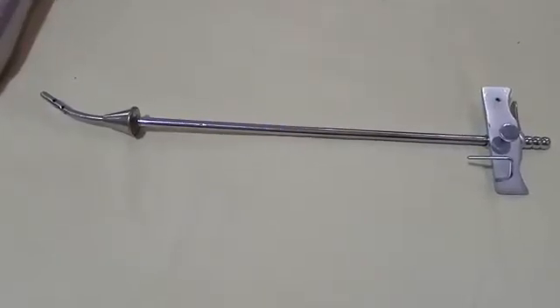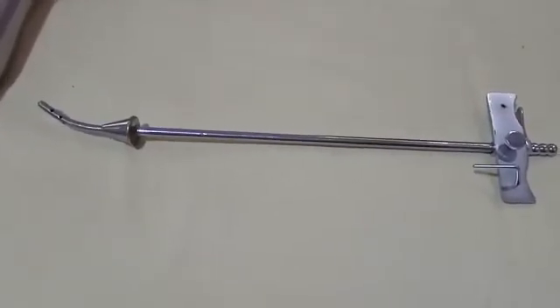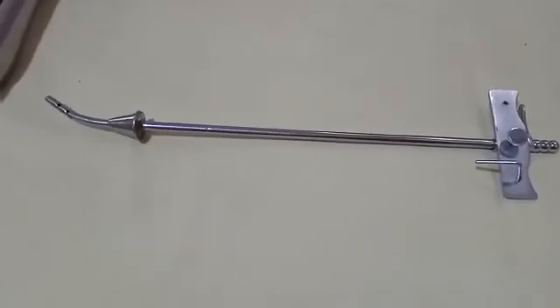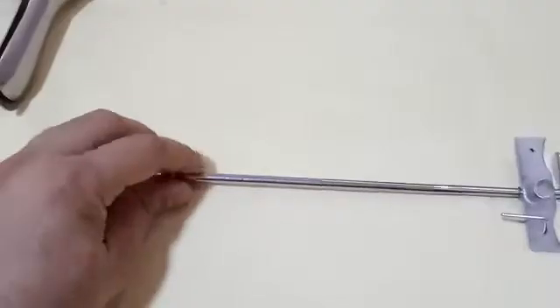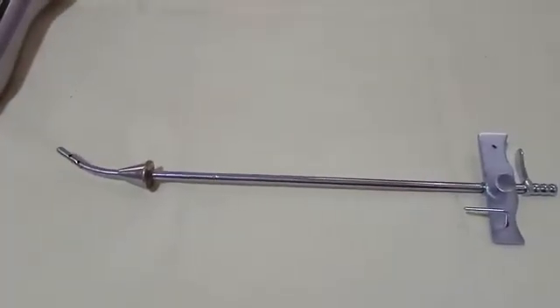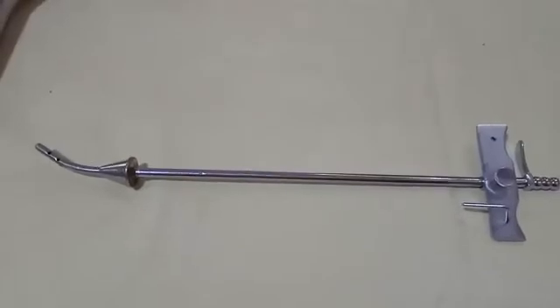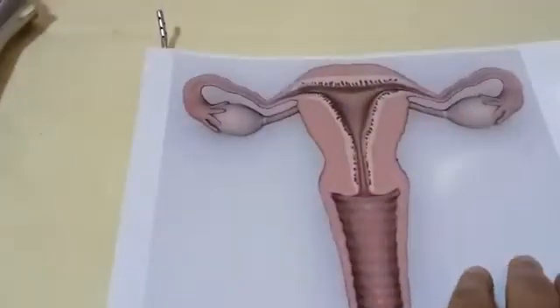Today we will discuss hysterosalpingography. This is the equipment used for the procedure — the olive insufflation cannula. This cannula is used to inject dye inside the uterine cavity.